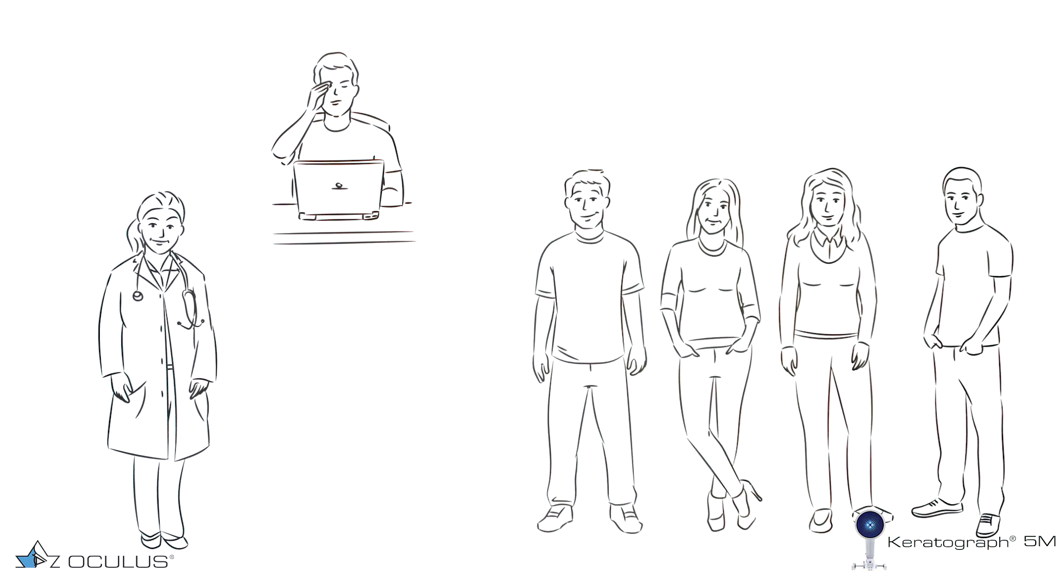As an eye care professional, you may come across dry eye syndrome frequently. It's a progressive disease that affects a lot of people.